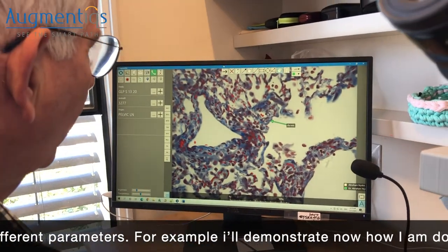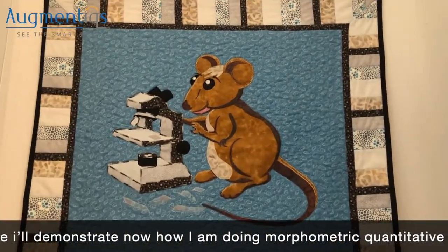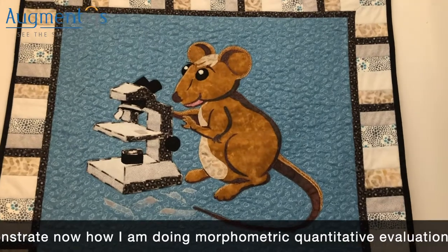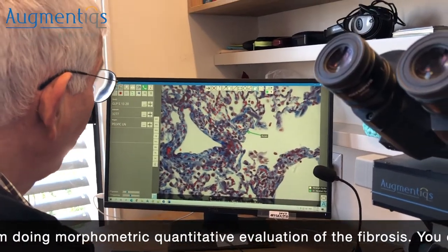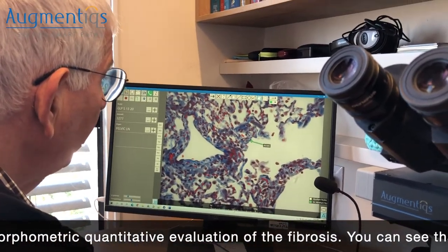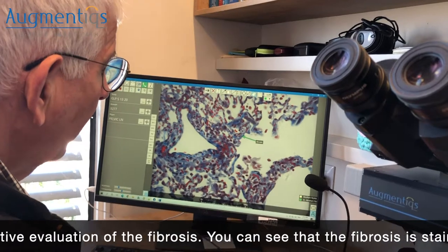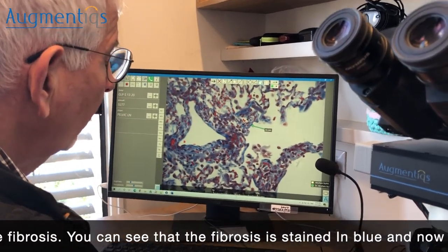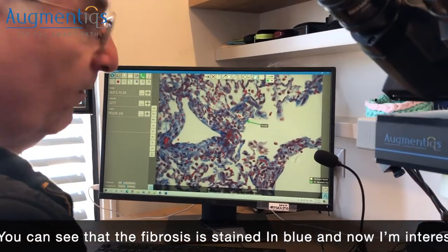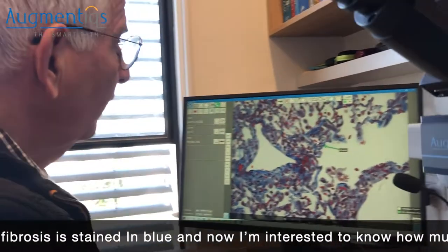In addition, there are algorithms to measure different parameters. For example, I will now demonstrate how I perform a morphometric quantitative evaluation of fibrosis.